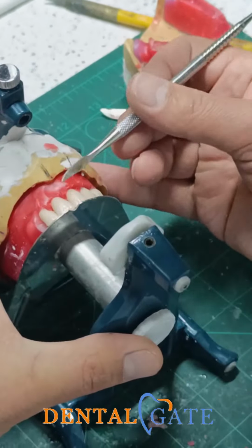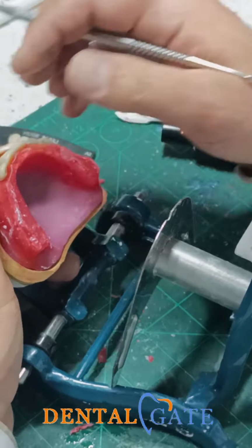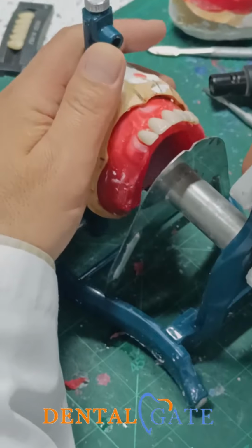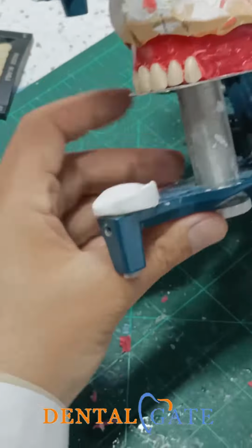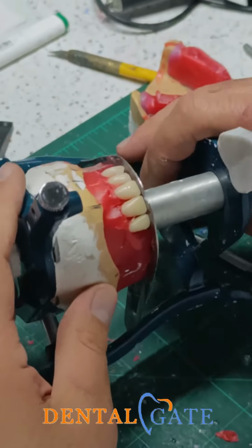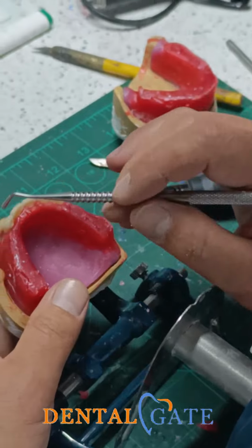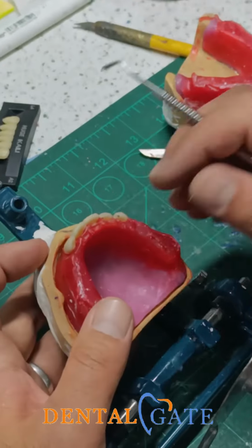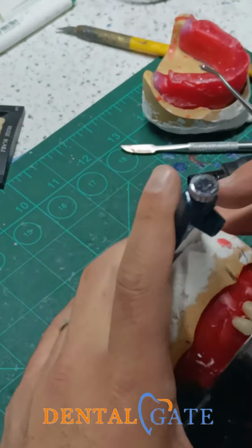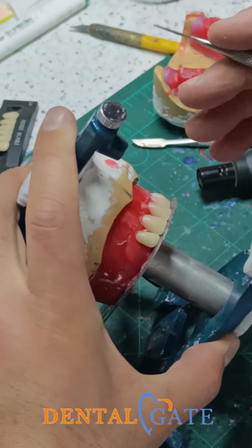So I think I made a mistake in the curvature. I pushed my central incisor to follow the curvature. So make a double check. I will see it from all aspects. And make a check of the curvature. So I will start to make this curve to compensate for the curve of the anterior region. And now there is a tiny space here. It seems good.